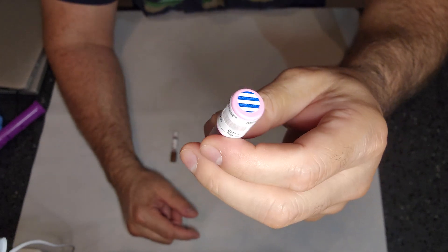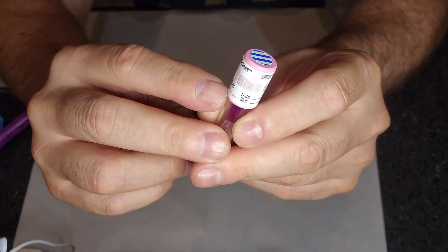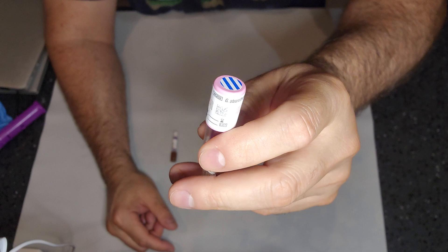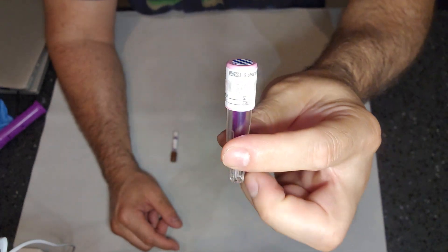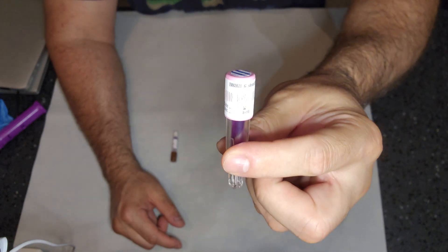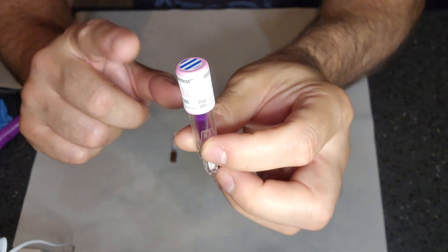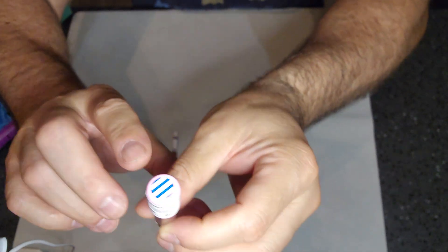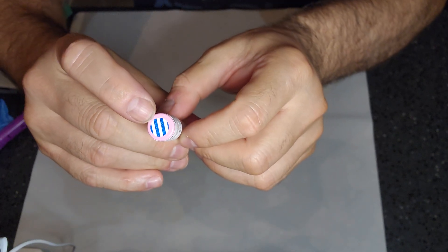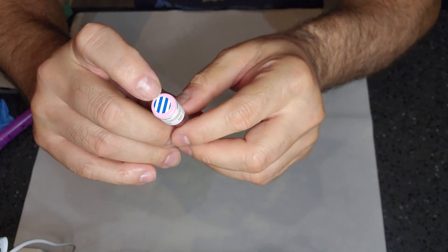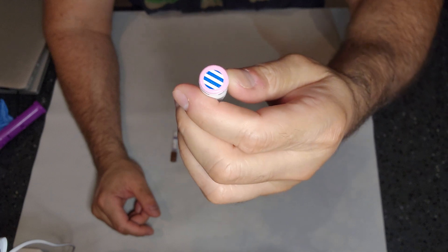That is why the label provides a space to put in the date, the sterilizer number, and the load number. If you have a tracking system, there's no need to do that, because the tracking system can be linked up to your biological incubator as well as your sterilizer. So the cap, very important, has the vents. It has a type 1 process indicator on the top that lets you know that it is exposed to the sterilant. It tells you the bacteria of choice, which is Geobacillus stearothermophilus.